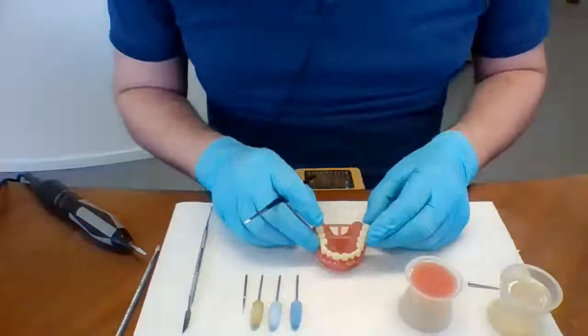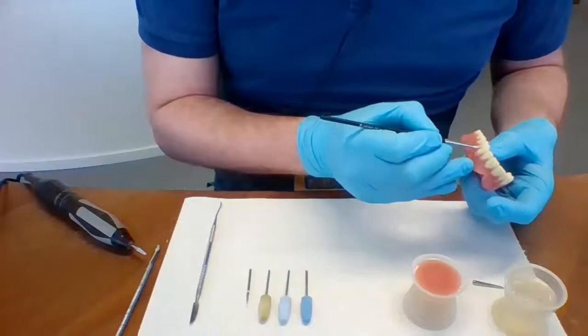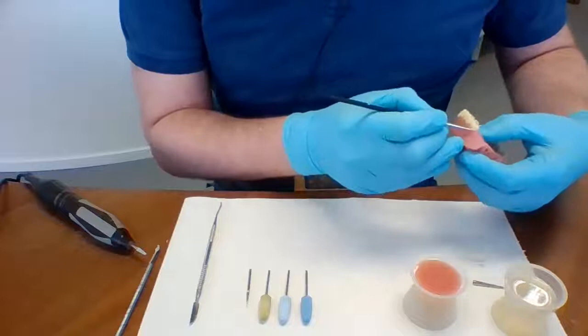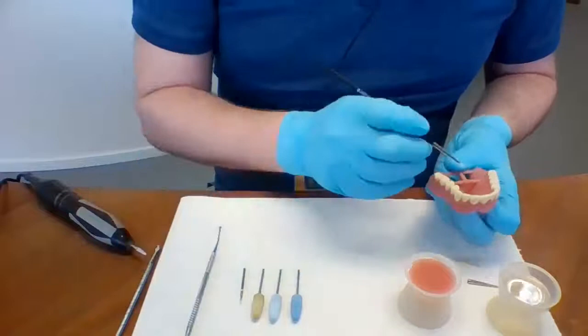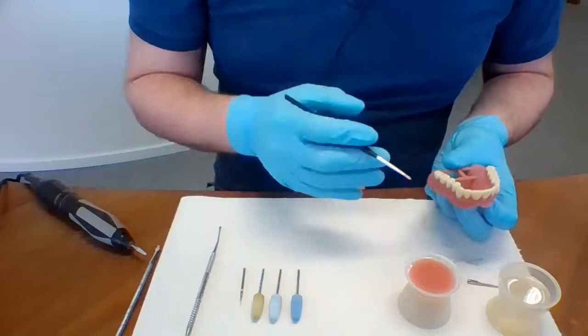These parts are not post-cured yet — we post-cure after placing the material in the tooth pockets and removing excess material from the outside of the denture base. While printing, the material is not 100% cured, and we use this leftover uncured material to our advantage, creating a chemical bond with the liquid being placed in the pockets. After filling all tooth pockets, wipe away excess, place the tooth arch in the denture base, and remove all excess material from the cervical area.